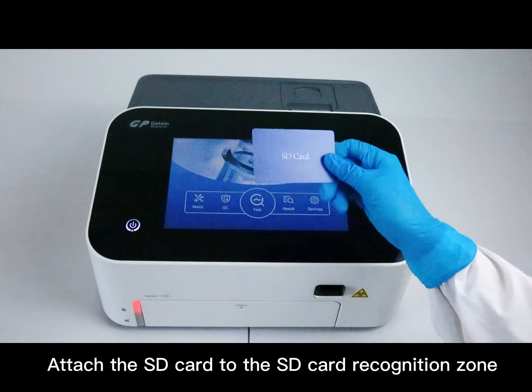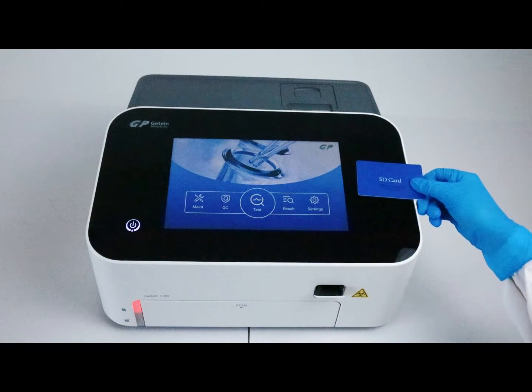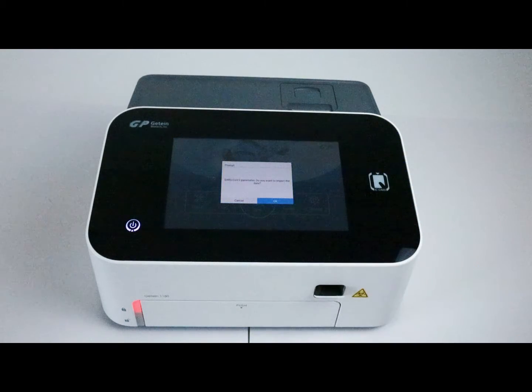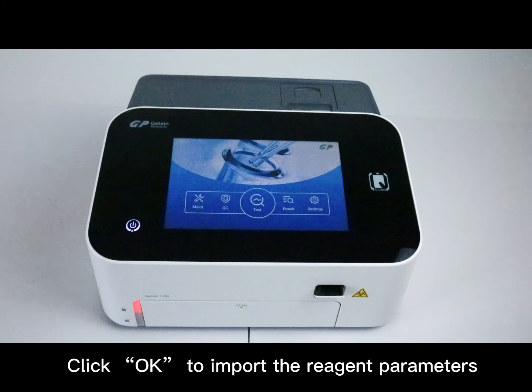Attach the SD card to the SD card recognition zone. Click OK to import the reagent parameters.